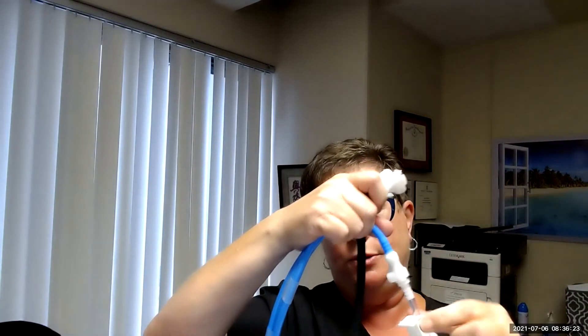And let me just put my camera back up here and show you the three prongs. And they just fit together by pushing, pushing in and they just friction fit. And then you would undo the clamp.